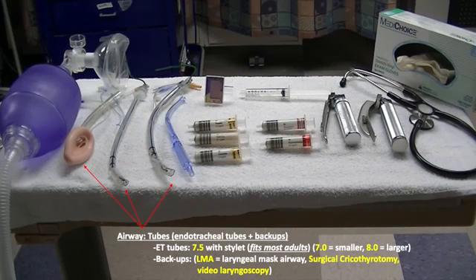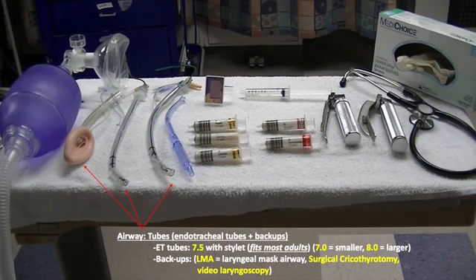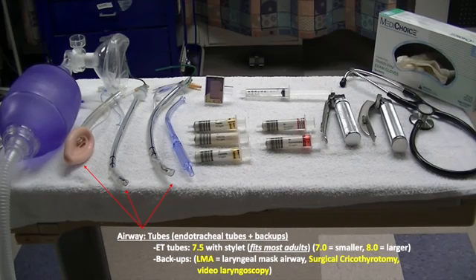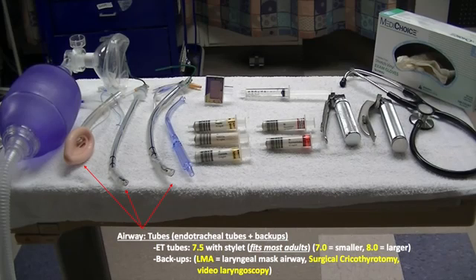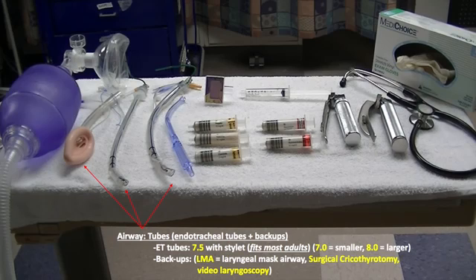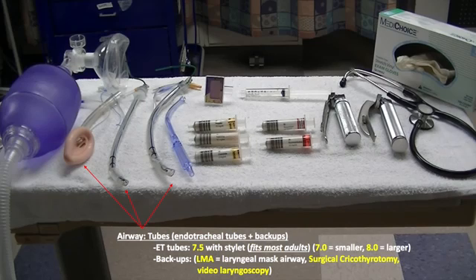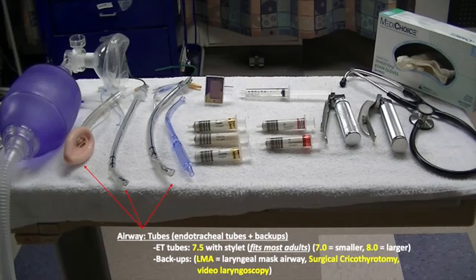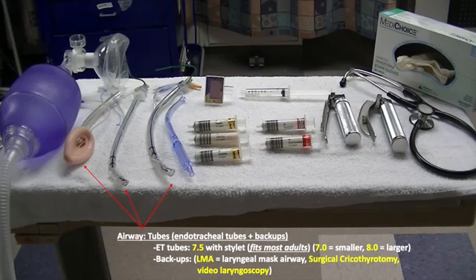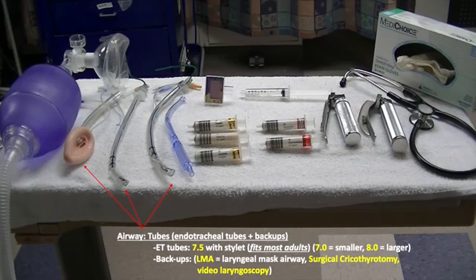Airway. What you see are two endotracheal tubes with stylet placed, in addition to a rescue airway on the left. Endotracheal tubes come in various sizes; the most commonly used size is 7.5. You can use a 7.0 for smaller adults and an 8.0 for larger adults. The rescue airway on the left is called the laryngeal mask airway and can be placed when the endotracheal tubes fail.